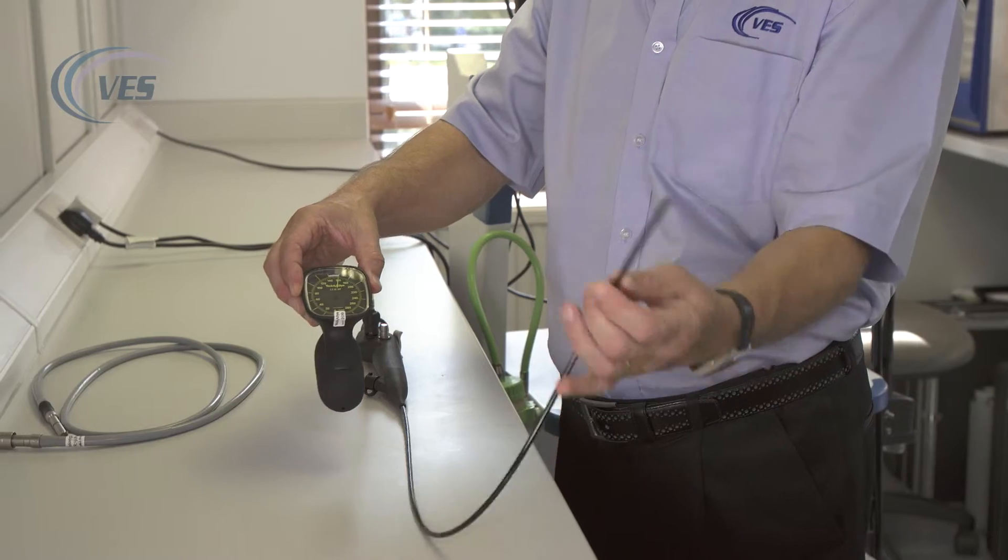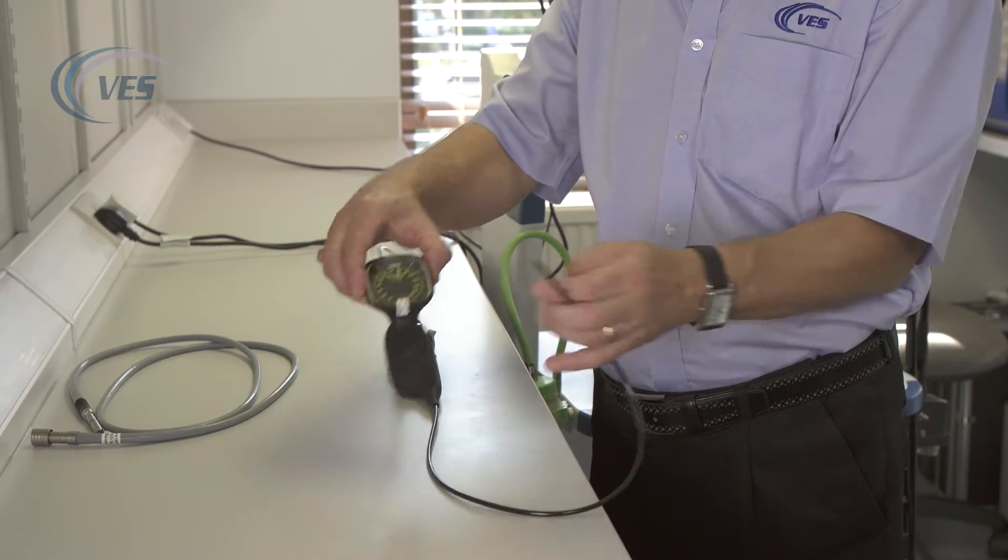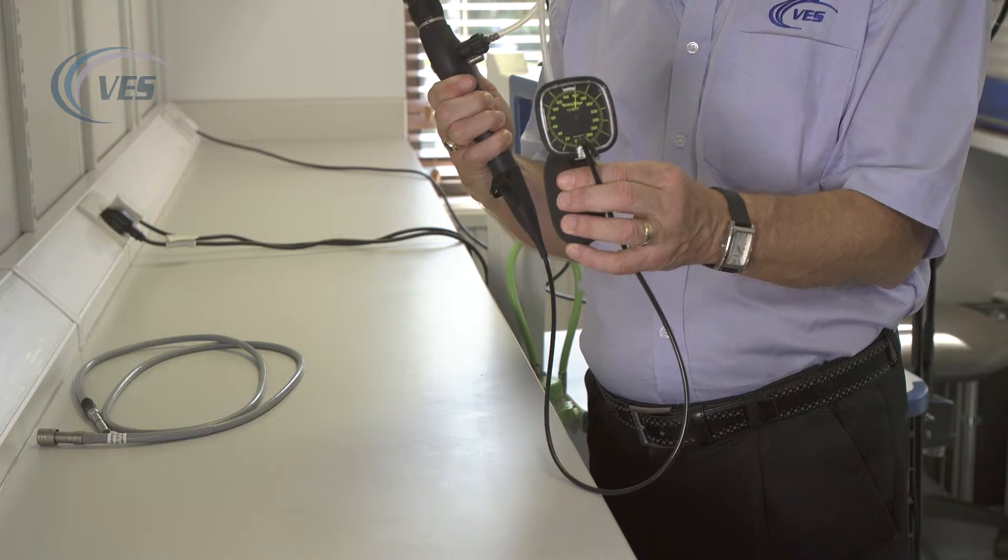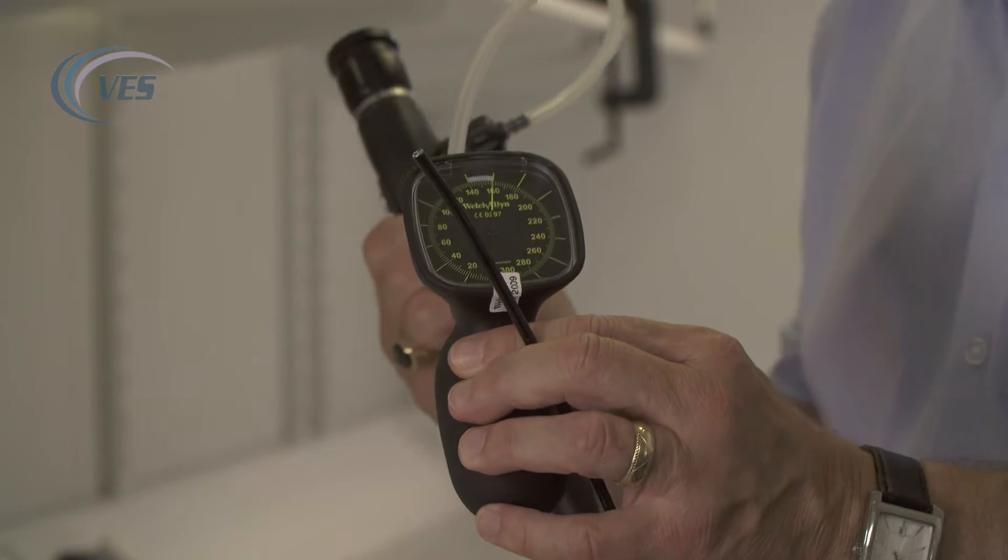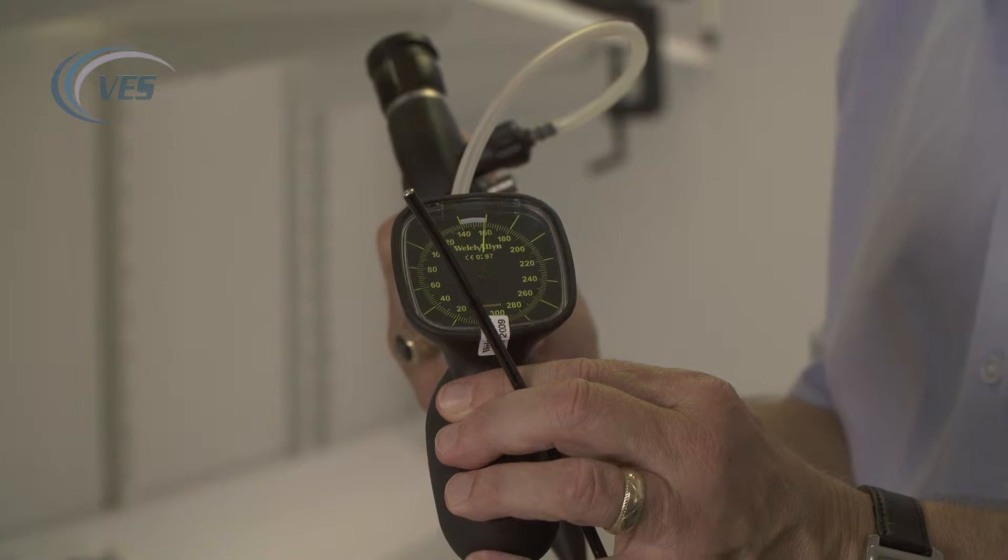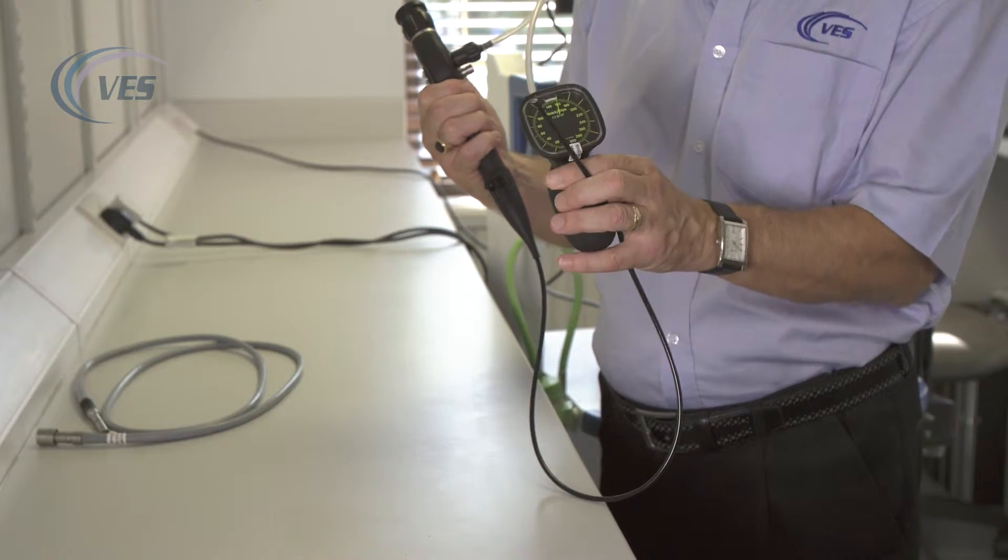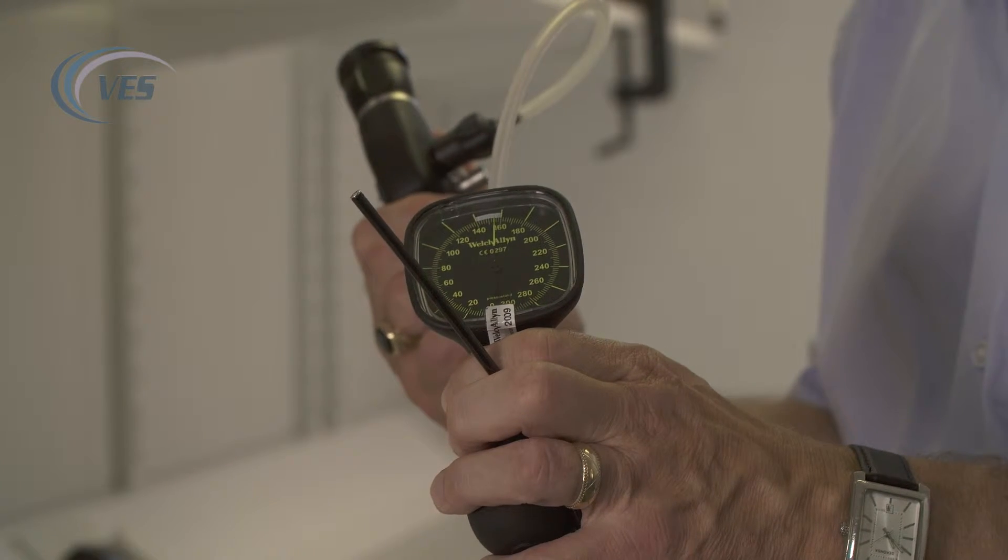What we do is manipulate the tip in both directions whilst keeping an eye on the leak tester. If that doesn't drop, then we know that the scope is safe. Release the pressure from the scope, which is important.